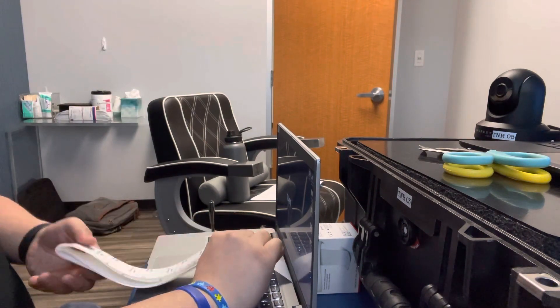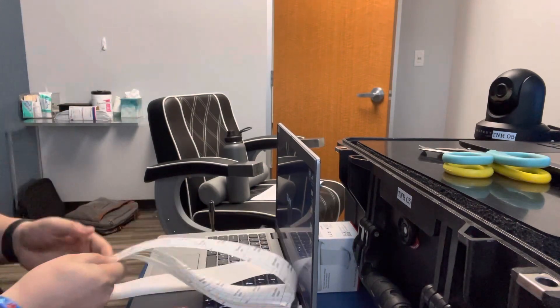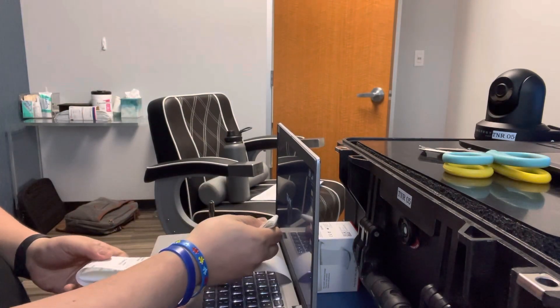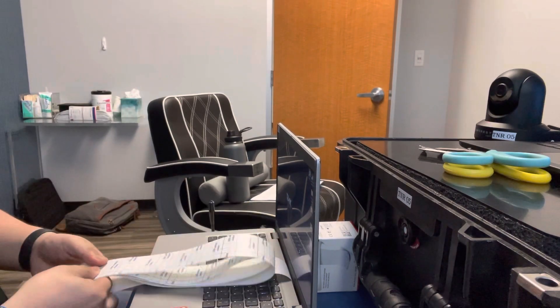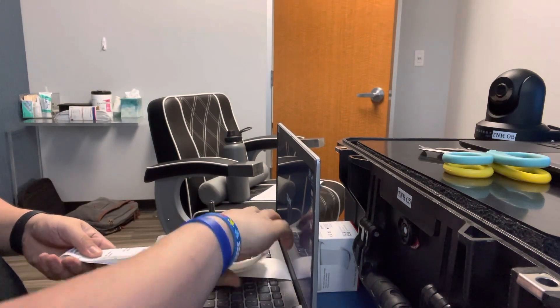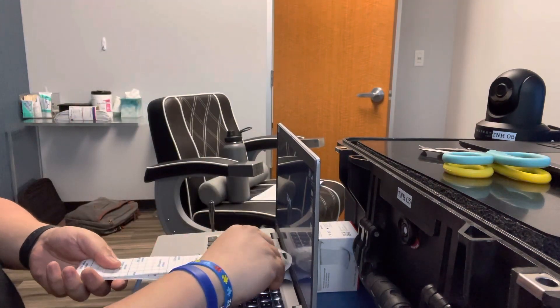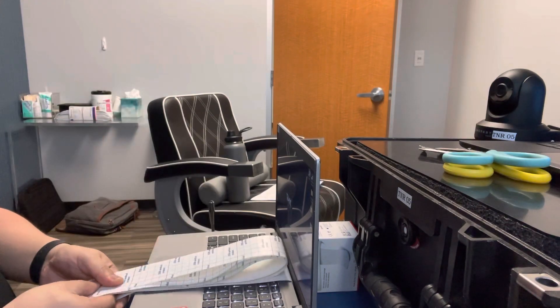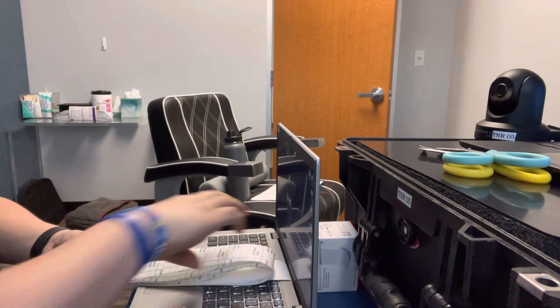And when you flip it over, make sure you give it a flip — like pow, you know what I mean? You got to pinch the end every time, like that. This might take a little longer because I'm talking a little bit more, but see what I mean?